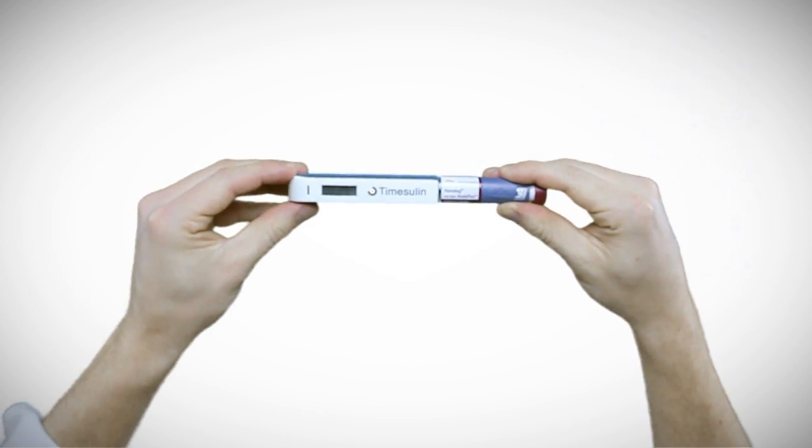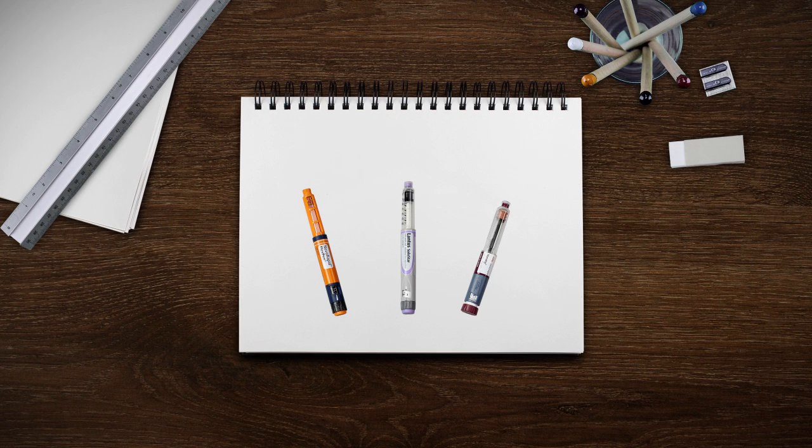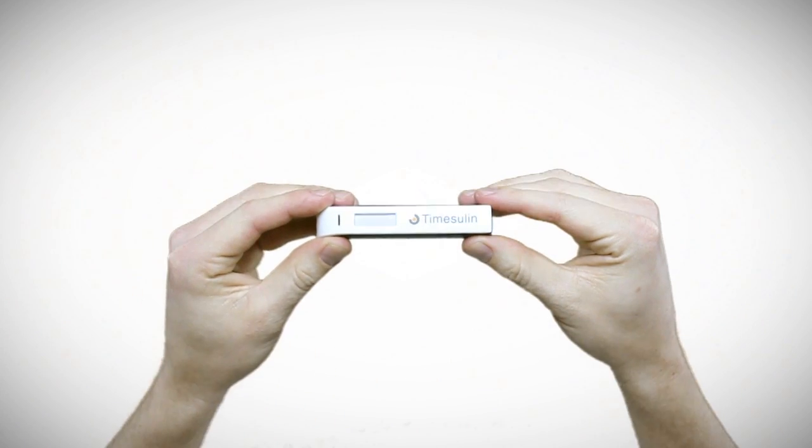It's compatible with all major pen brands and makes life with diabetes a little easier.